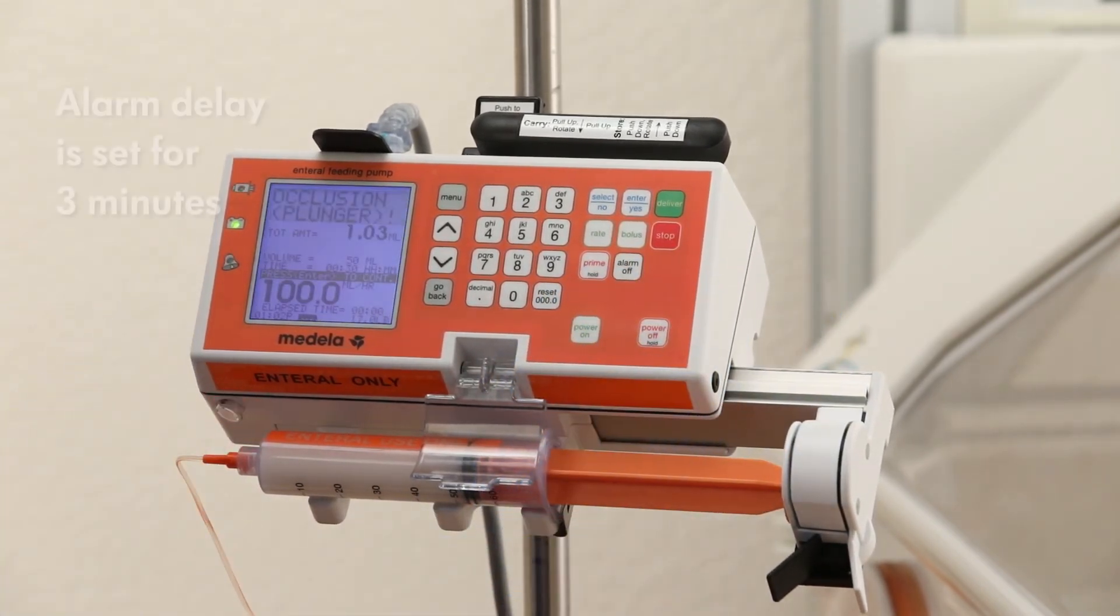Alarm delay is set for 3 minutes. This is how long the alarm will stay off before turning on if silenced or if the pump has been set and deliver is not selected.